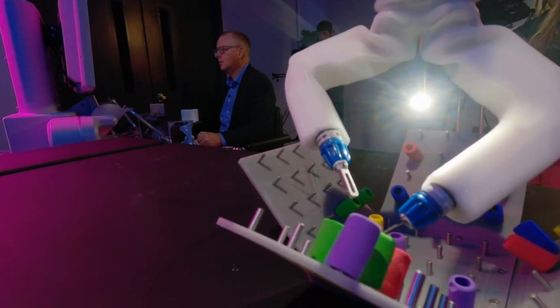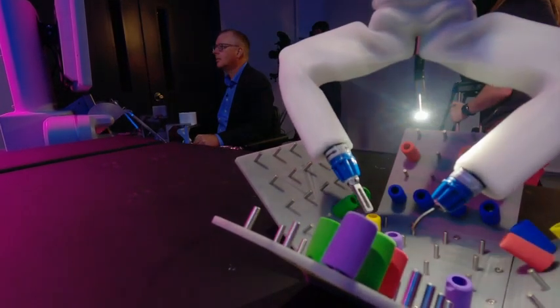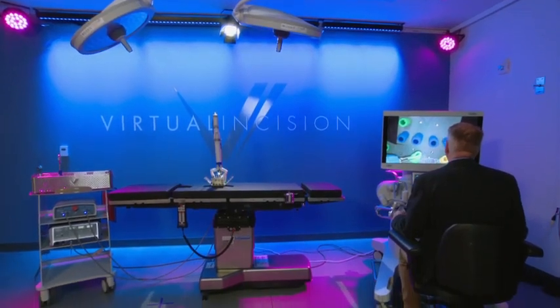Are you having fun with this? Yeah, I've always enjoyed making robots and I've always enjoyed building things. I get to do both here. Best part of what this sort of triggers for you personally? Without a doubt, the best part is the idea that we could make an impact — that we can help people have better surgeries. The more of that we do, the better. So I think there's a potential to one day treat many, many patients and help a lot of people.